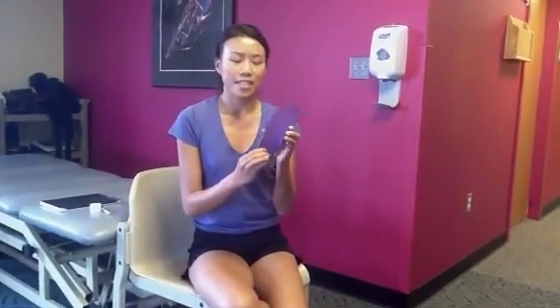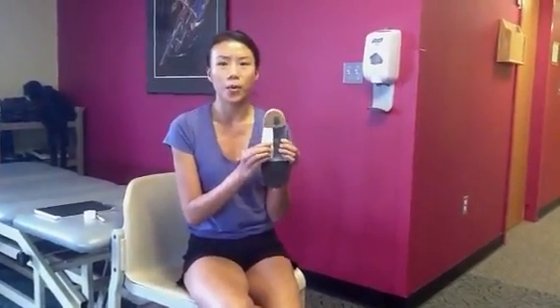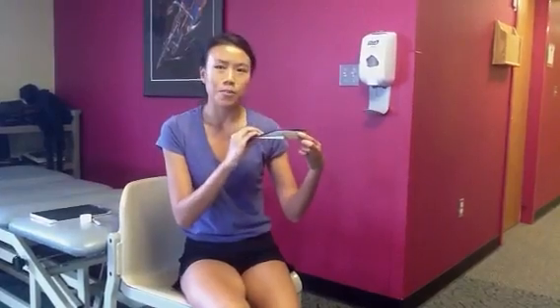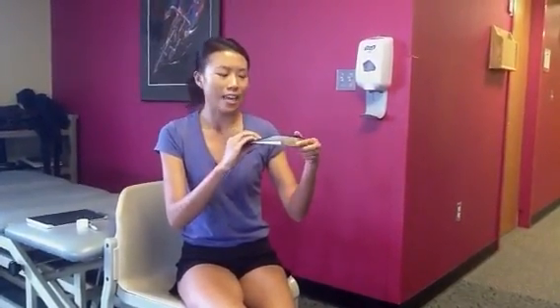The orthotic that we made for me includes a root-balanced orthotic that stabilizes the three columns of the foot, a flat rear foot post to create no motion and support my supination, and a lateral flange and a deeper lateral heel cup to prevent my supination in gait.